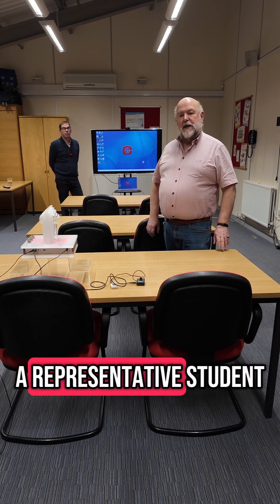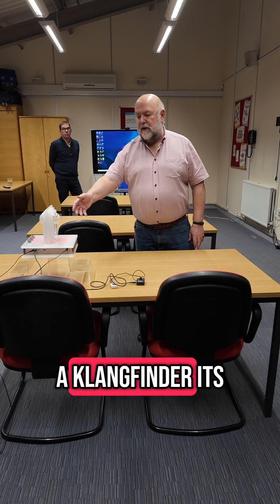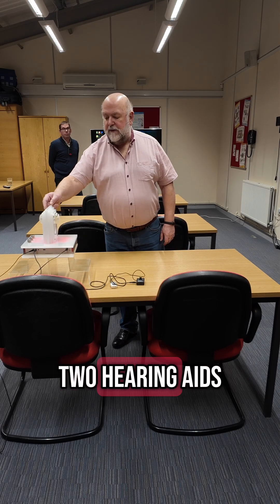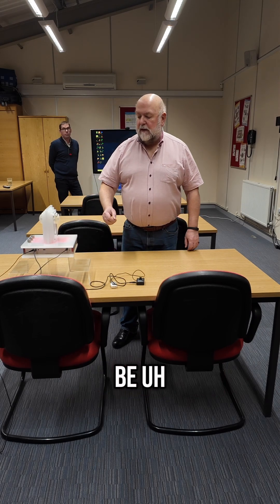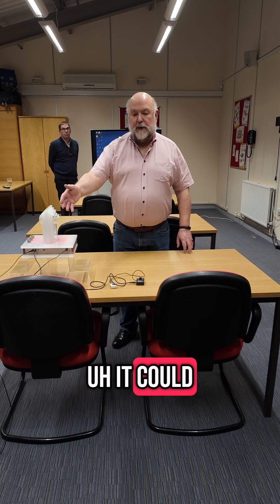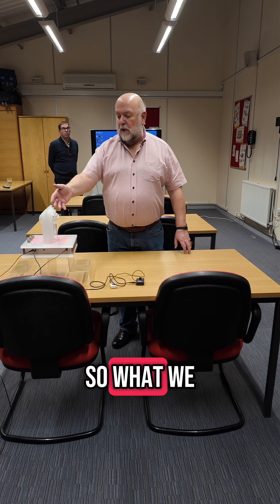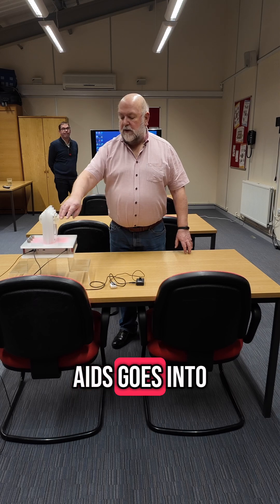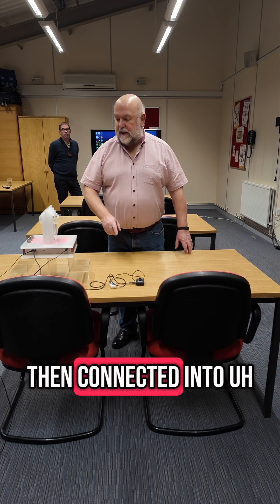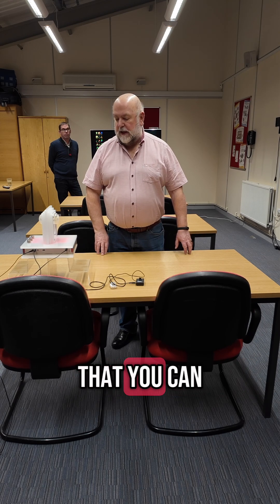Here we have a representative student. This device is called a Clang Finder — it's a simulator. On either side there are two hearing aids; they happen to be Roger Direct, but it doesn't really matter. It could be any hearing aid with a shoe or with a neck loop. The hearing aids go into this little box, and the output of the box is then connected into our video system so that you can hear what's going on.